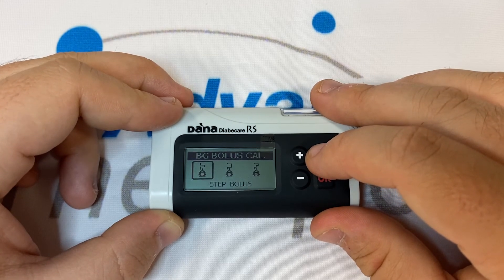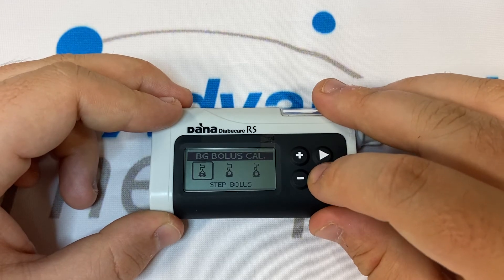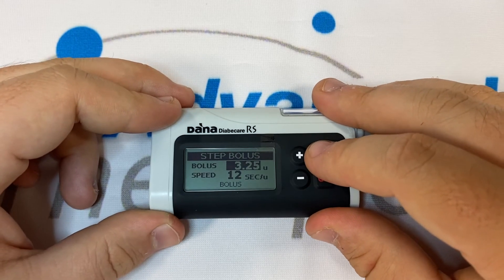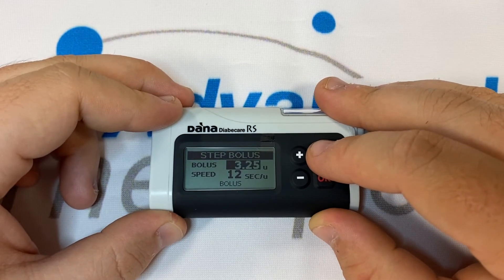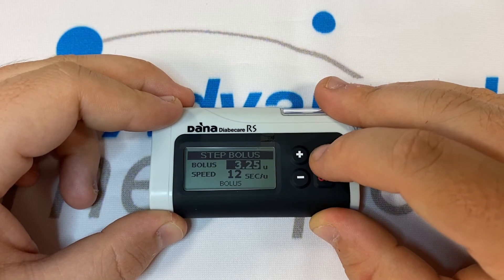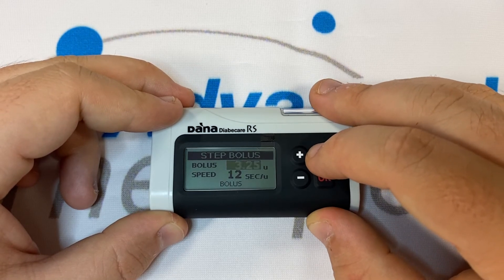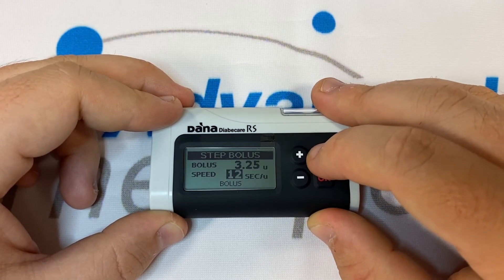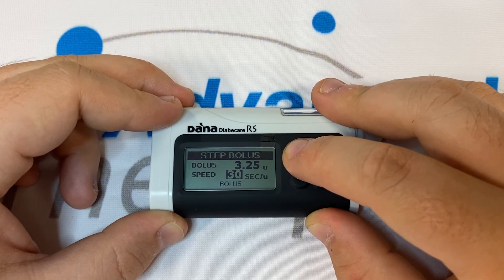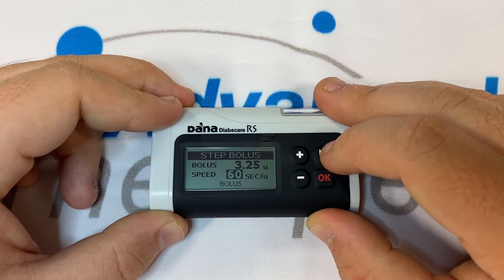Once you've chosen how you'd like to deliver your bolus press OK. Ultimately you can change the size of the bolus up or down if you disagree for any reason. With a step bolus you may choose to slow down the speed of delivery from 12 to 30 or 60 seconds a unit.